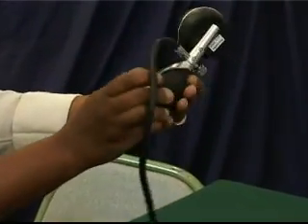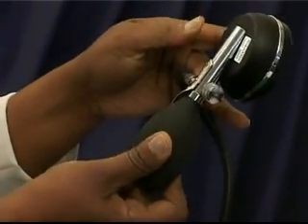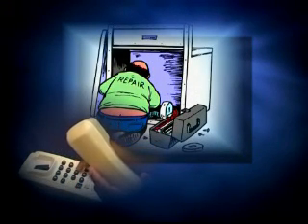The dial face and outer casing should be checked prior to use. Should there be any visual signs of damage, such as cracks or a loose needle, then the unit should be sent to a qualified technician for repair and calibration.